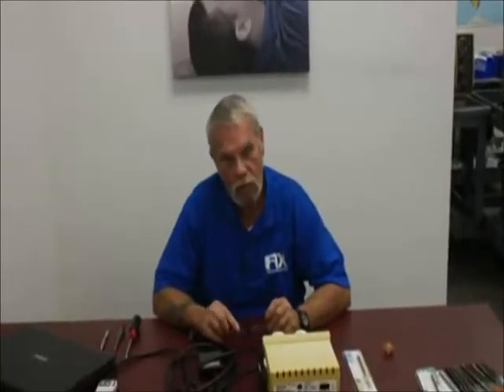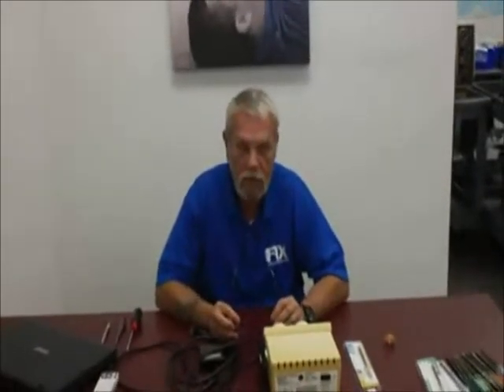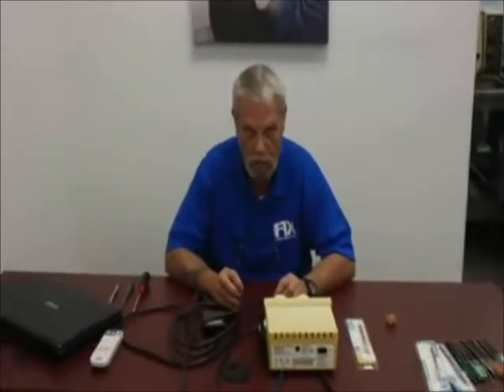Good afternoon, ladies and gentlemen. If you're all familiar with me, I'm Harry. We are going to do a cavitron outline course. I'm sure many of you have run into cavitrons or ultrasonic scalers, as they're known as, in several offices and had several repair requests.